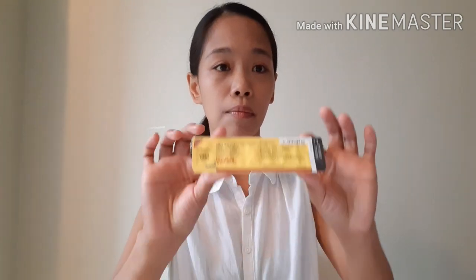I've already cleaned and sanitized my hands. I have here the EPO injection, an alcohol swab, and a sharps disposal box where I put the needle after use. This is from my doctor — when it's full I return it and they give me a new one. We shouldn't throw sharps anywhere; we have to dispose of them properly.